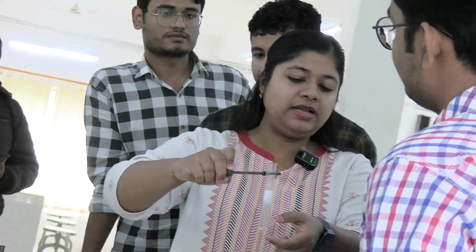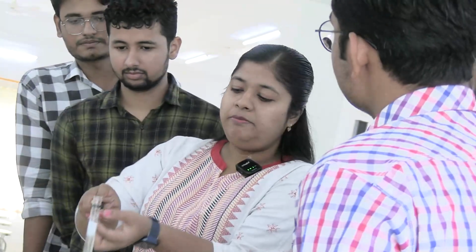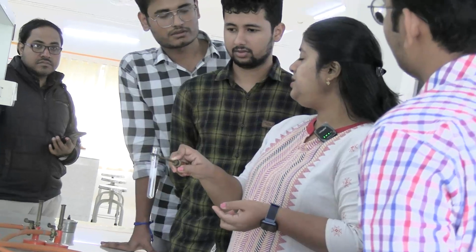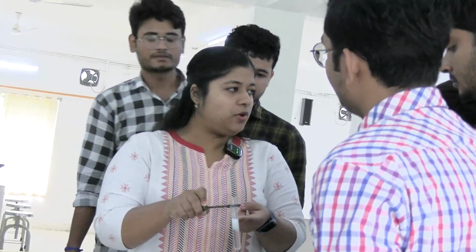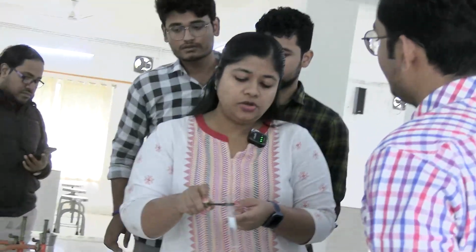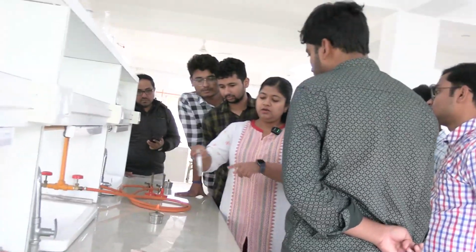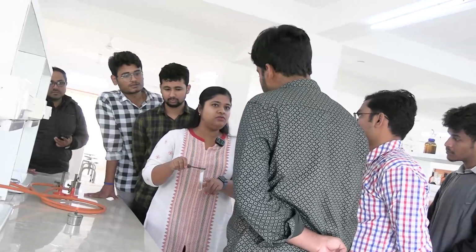The lower part is completely clear, transparent, but in the upper part there is cloudiness, and the cloudiness might be because of protein denaturation or any other substance on heating. They can give phosphate and carbonates. Phosphates and carbonates also can give white coagulum on heating. Okay? So to confirm whether this is protein or not, we will now add glacial acetic acid. If this is protein, so this is the confirmatory test. The adding of glacial acetic acid confirms the presence of protein.